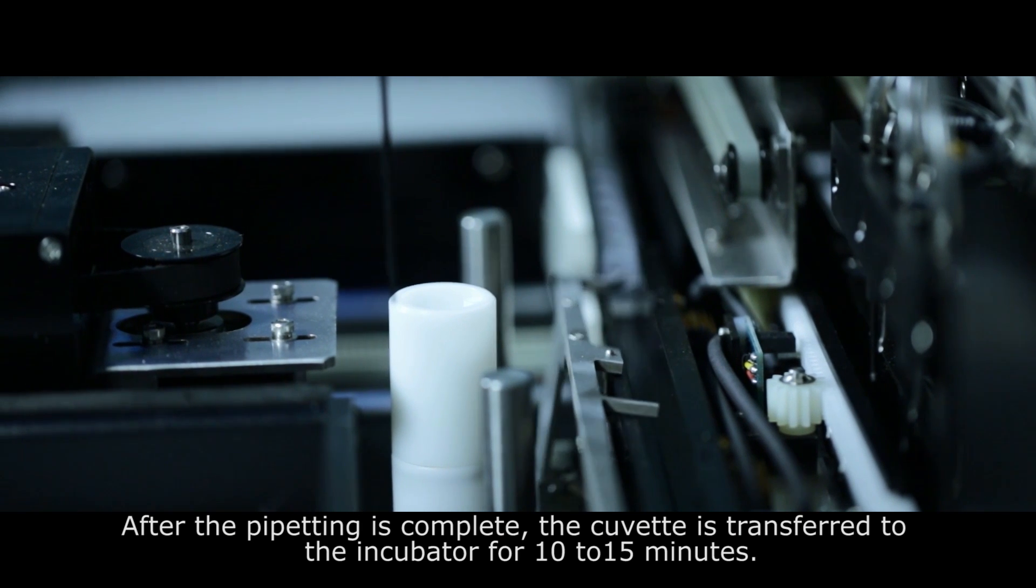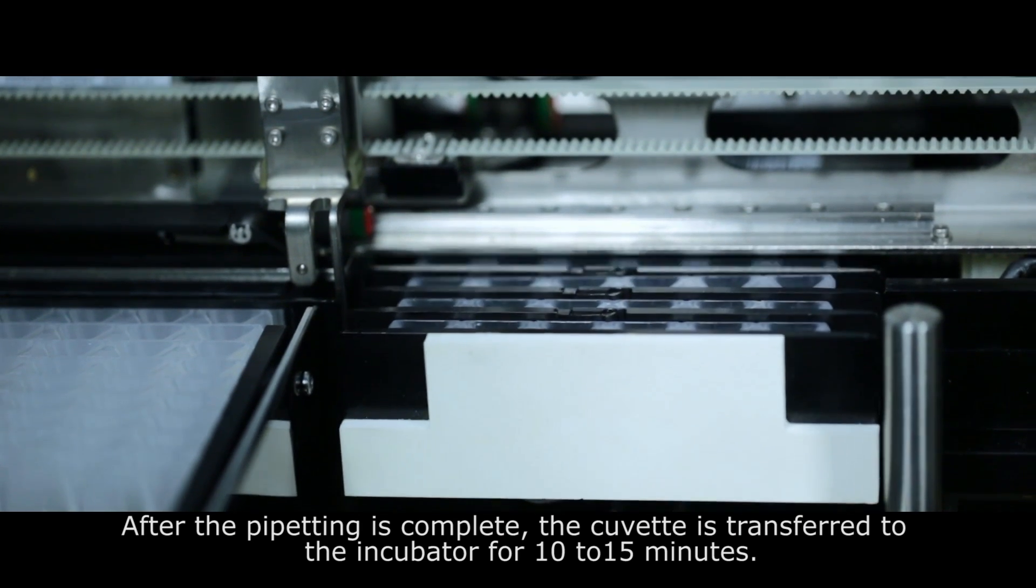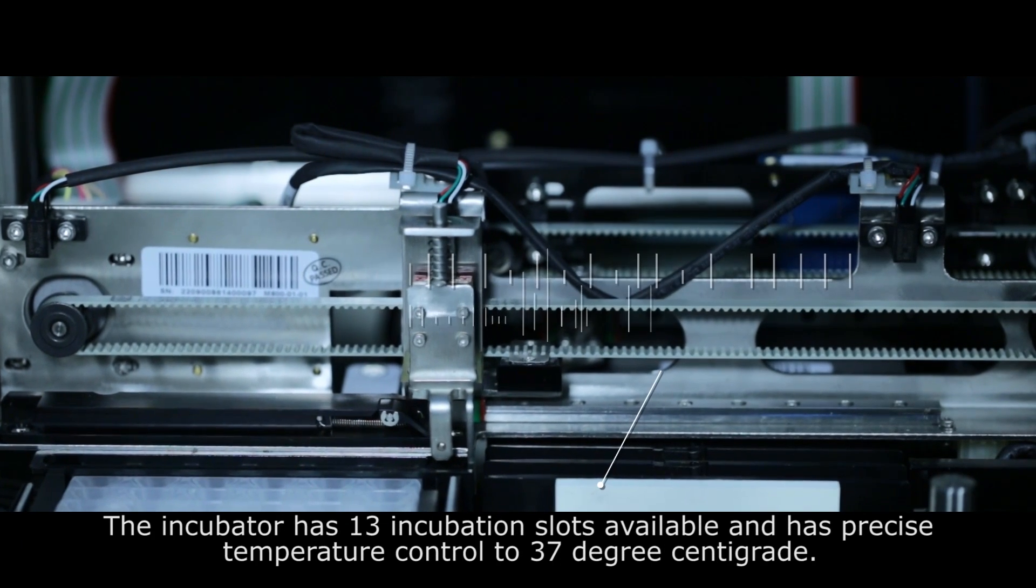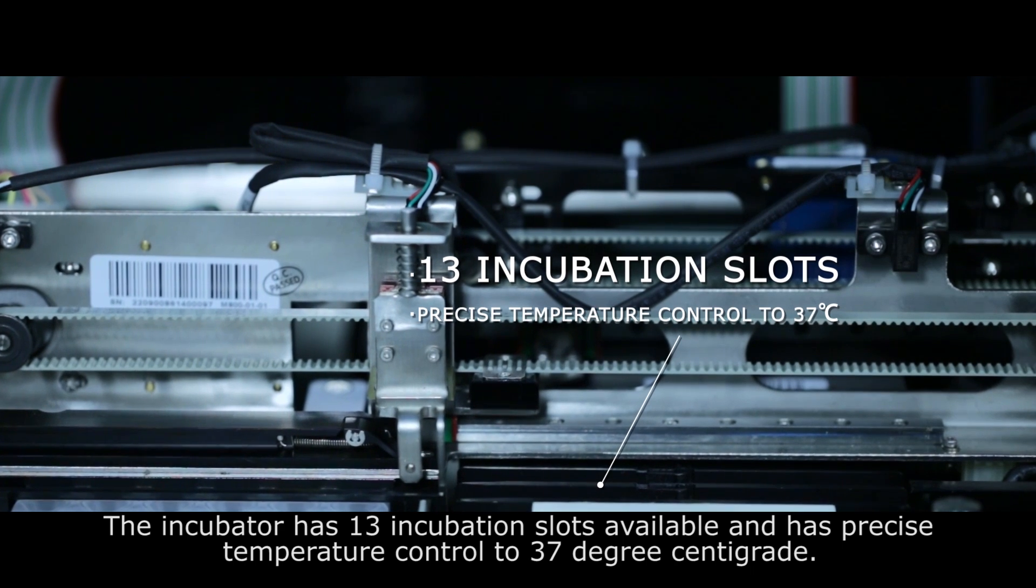After the pipetting is complete, the cuvette is transferred to the incubator for 10 to 15 minutes. The incubator has 13 incubation slots available and has precise temperature control to 37 degrees centigrade.